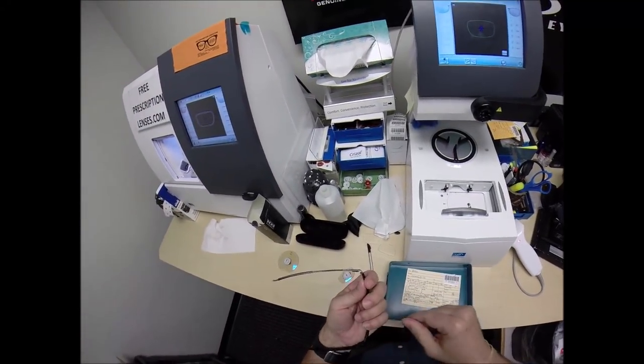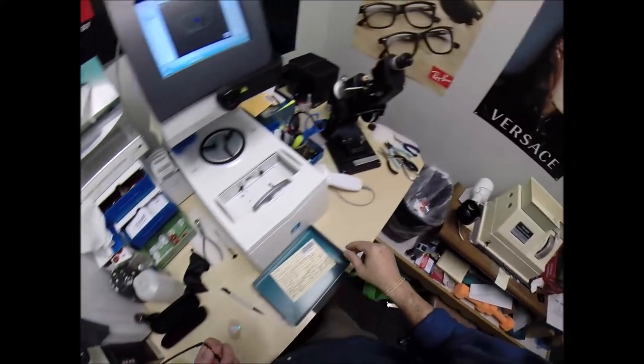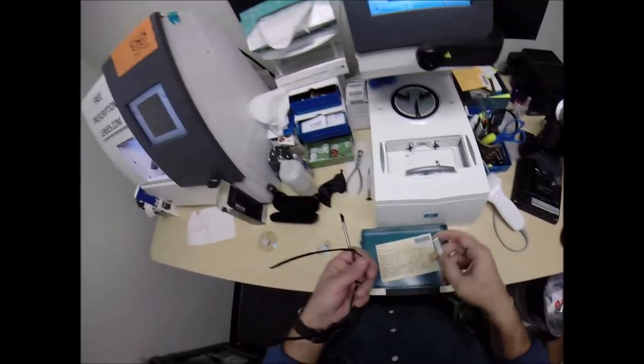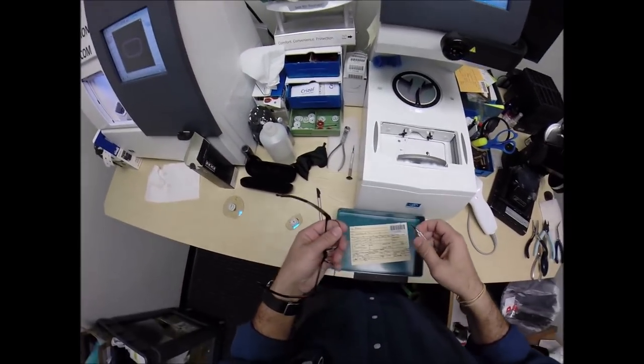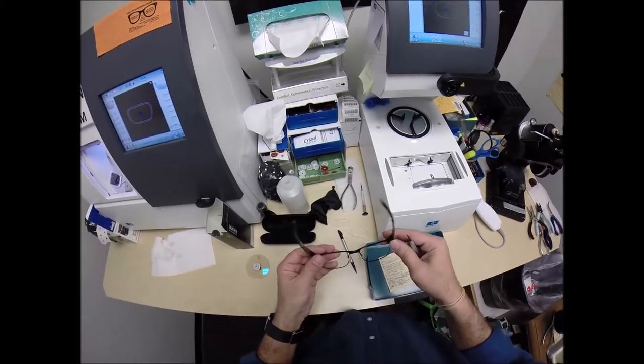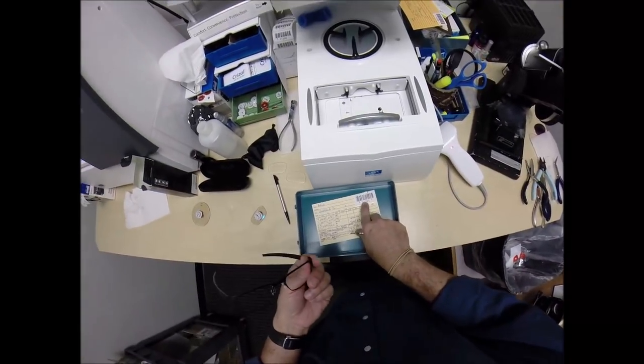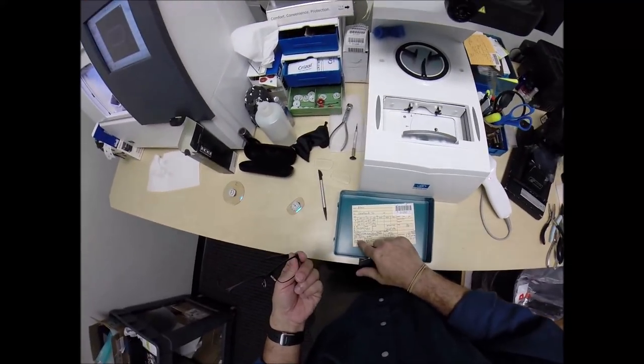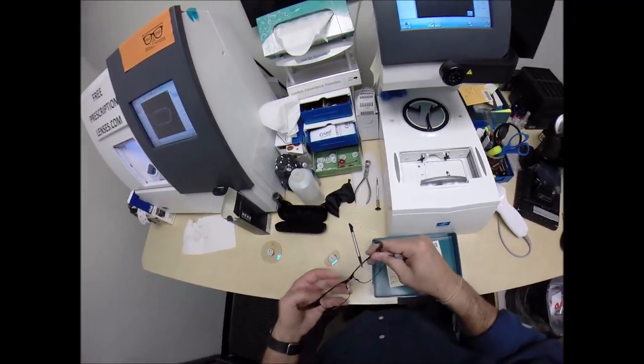We're going to do a little bit, what do I need? The Phillips head. Where are you at, Phillips? Come on, there you are, the red handle. Now years from now, Adam, if you ever need new lenses for this frame, your shape has been barcoded in there. Your pupillary distance, the optical center height.